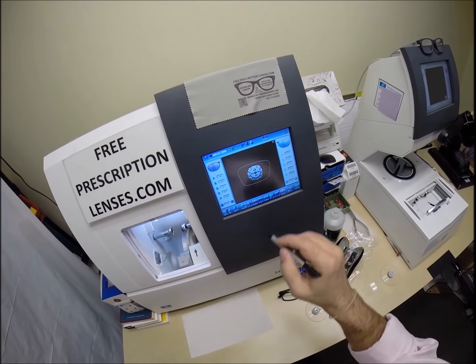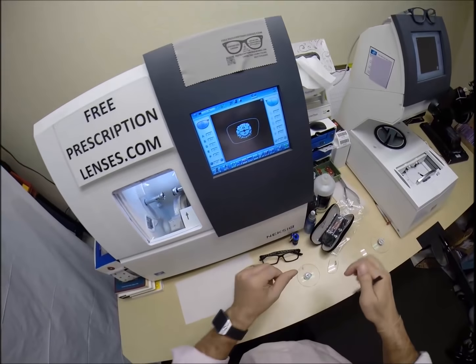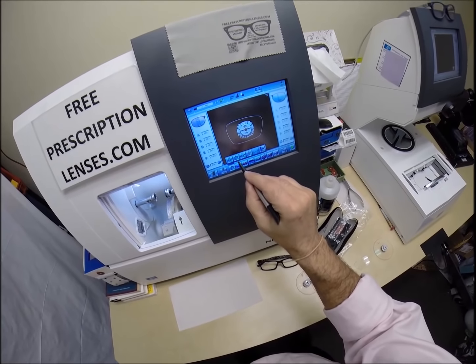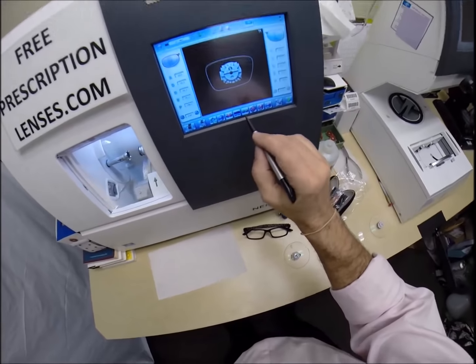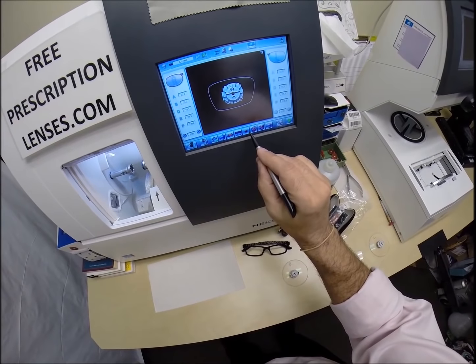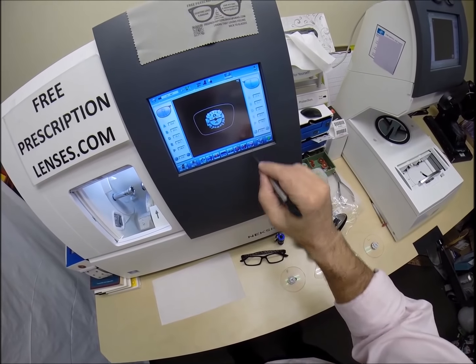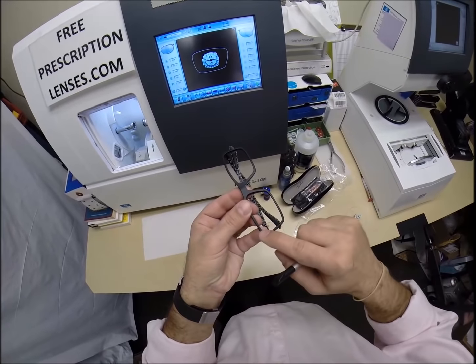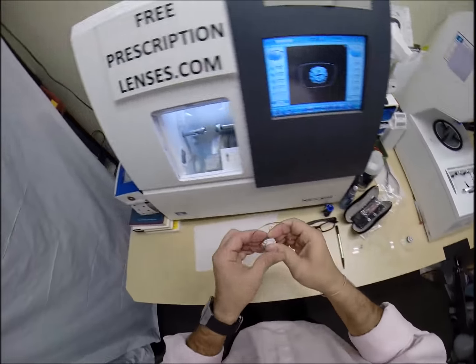Let's go ahead and wake up the computer. That is the shape of the lens we'll be cutting. Just a little bit, or bigger, a little magnified, excuse me, I'm all choked up over my anniversary. These are polycarbonate lenses, if they were plastic, high index plastic or Trivex, I would select that, but we're sticking with polycarbonate. I'm not going to polish the edge of your lenses. One, the two green stars means it's the slow cycle. If I did it on one red star, that means it cuts very fast. I don't like to cut lenses fast. I like to take my time and do it right. I am going to put a safety bevel on the rear concave surface of the lens. So let's put the lens in there, and then we'll hit start.